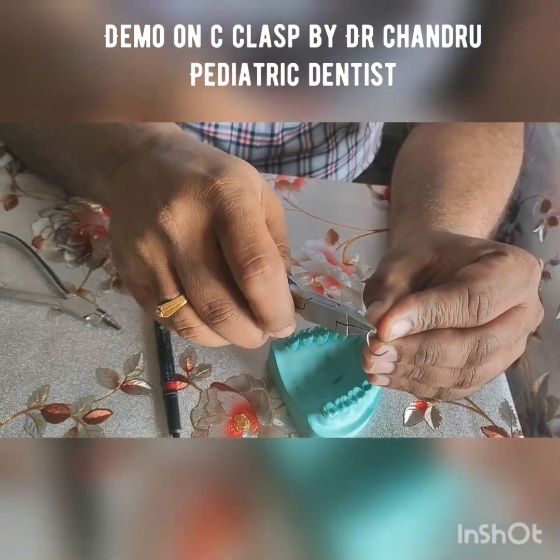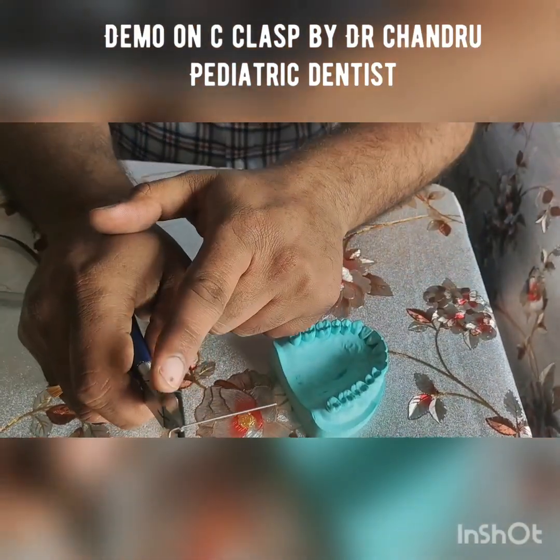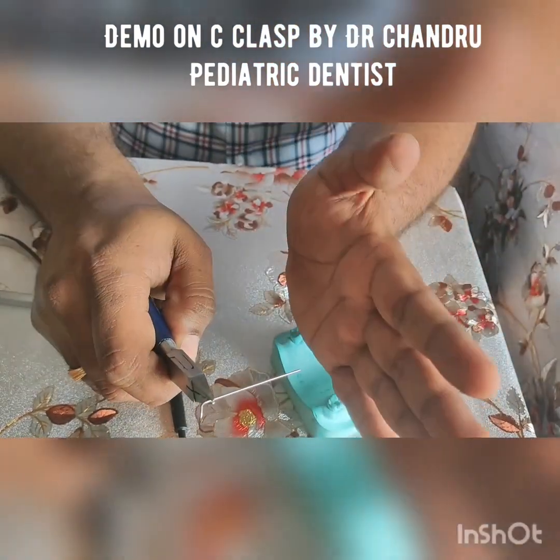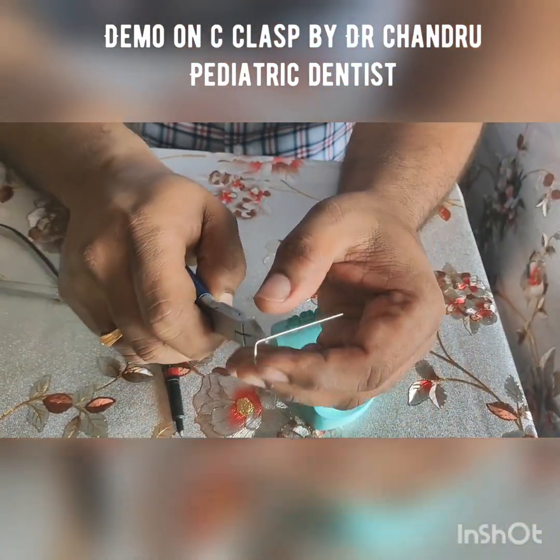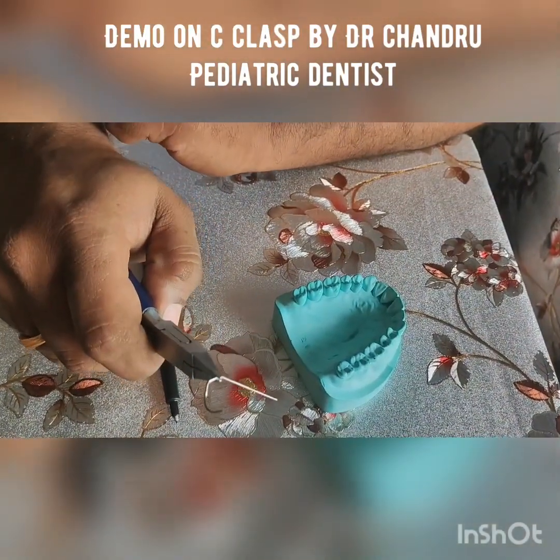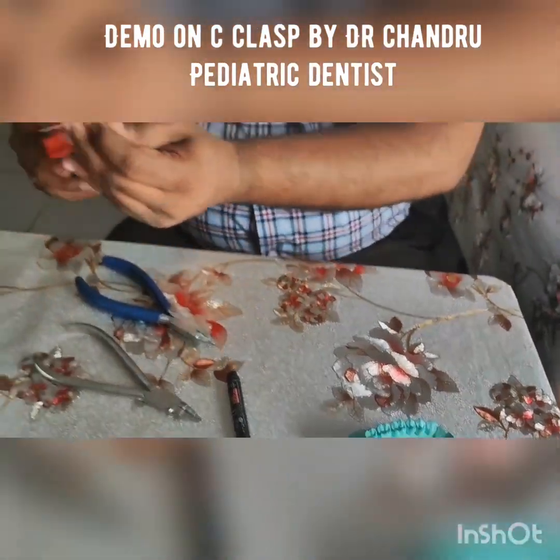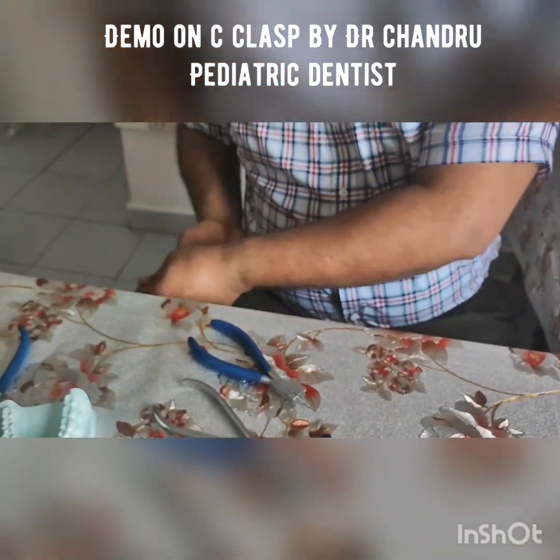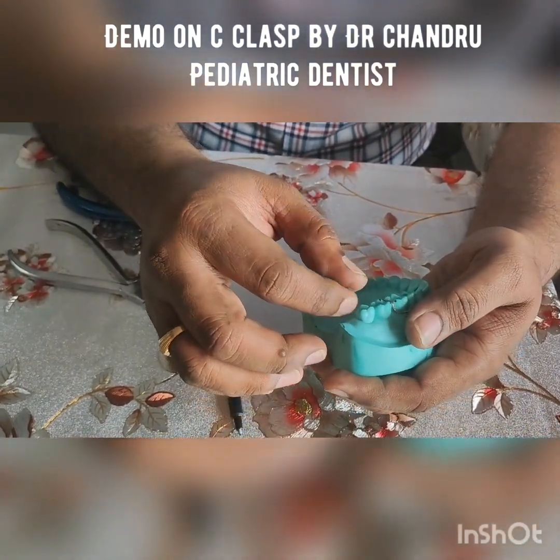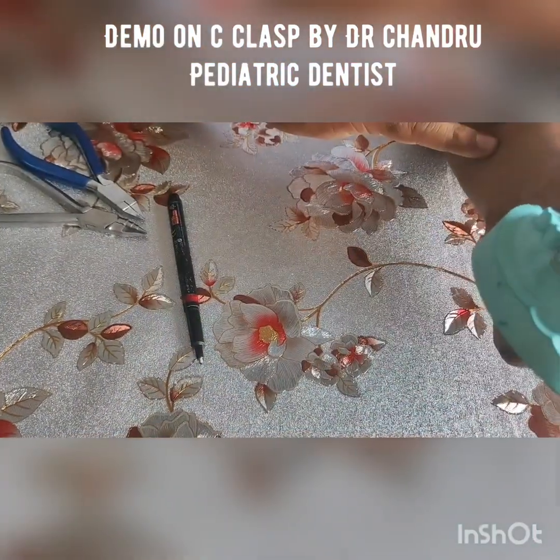at this point you have to hold the plier, where this will be your buccal surface and this is the occlusal surface. Now we are adapting towards the palatal surface. By giving a downward bend, this goes and gets adapted on the palatal surface. Okay, so still the wire remains in excess, so the excess of wire has been cut and it is placed on the tooth and rechecked whether the adaptation of the C clasp has been done correctly or not.